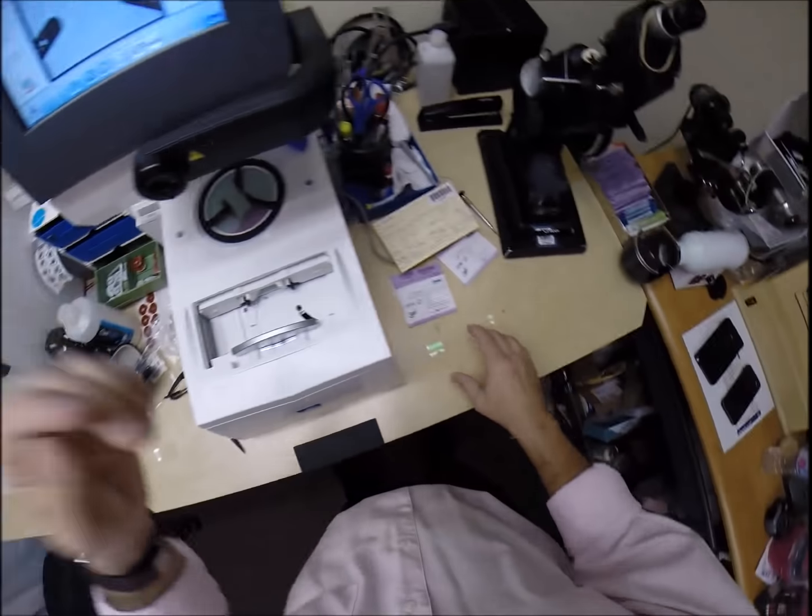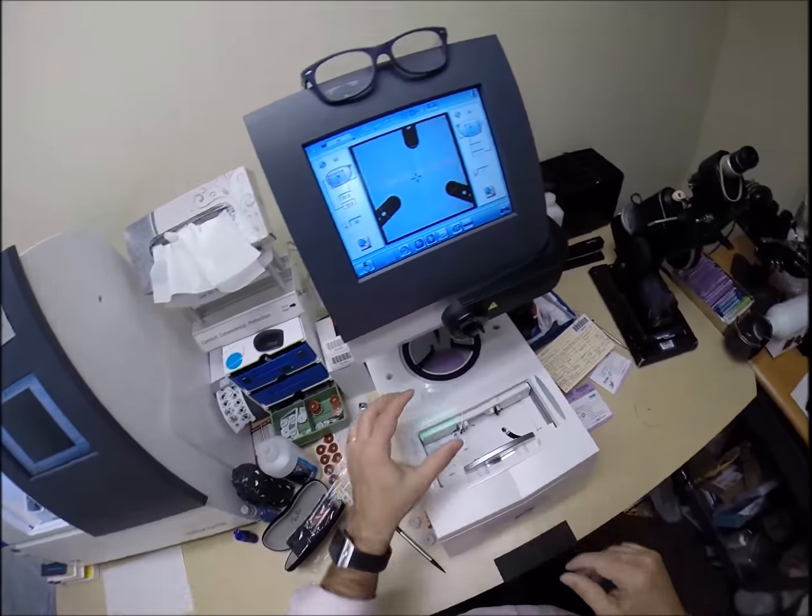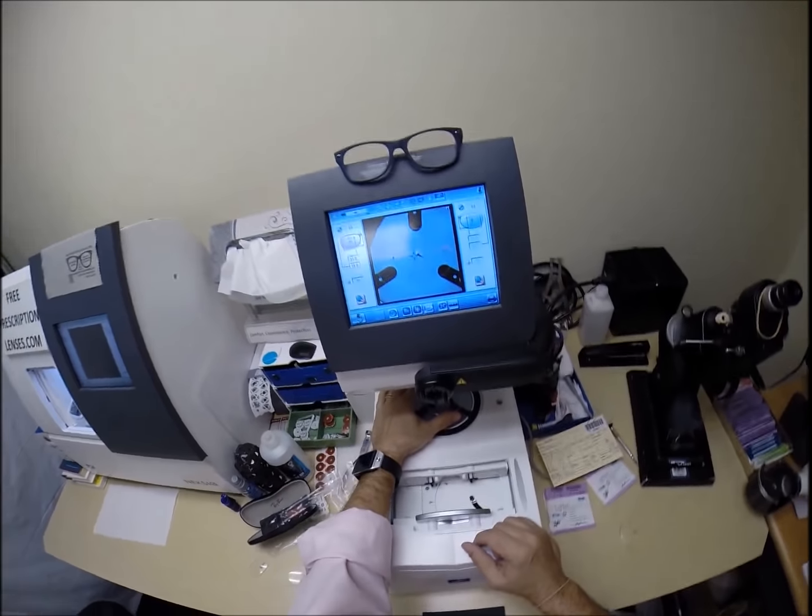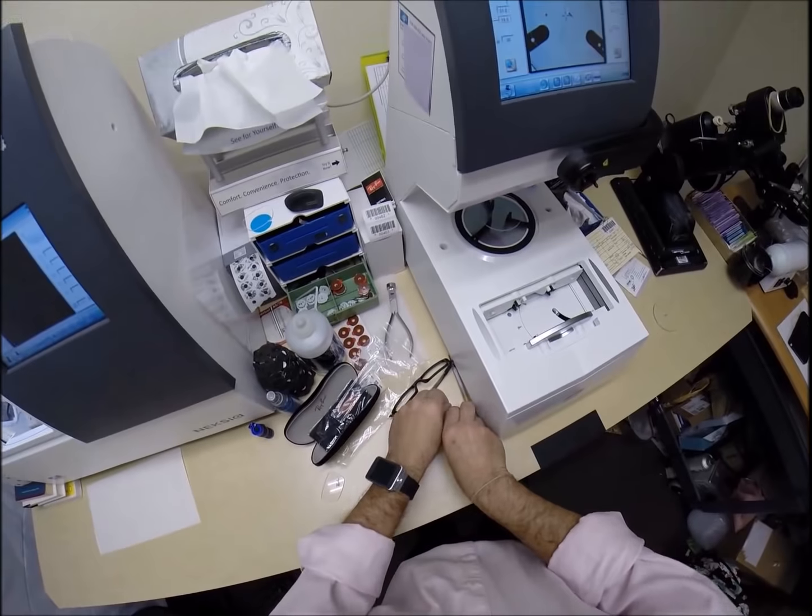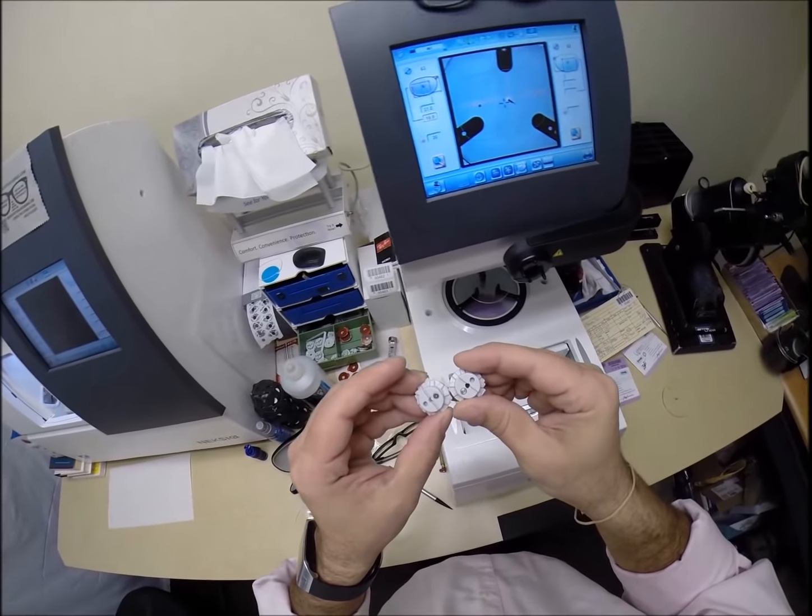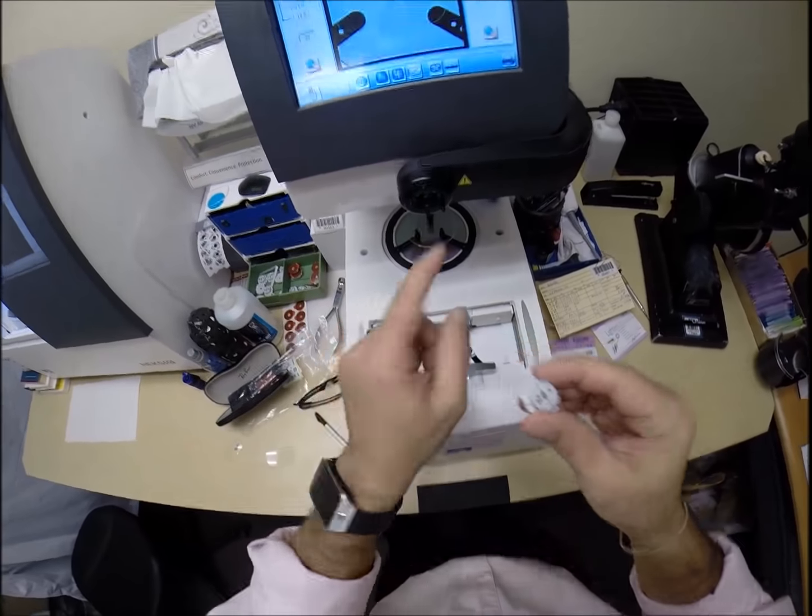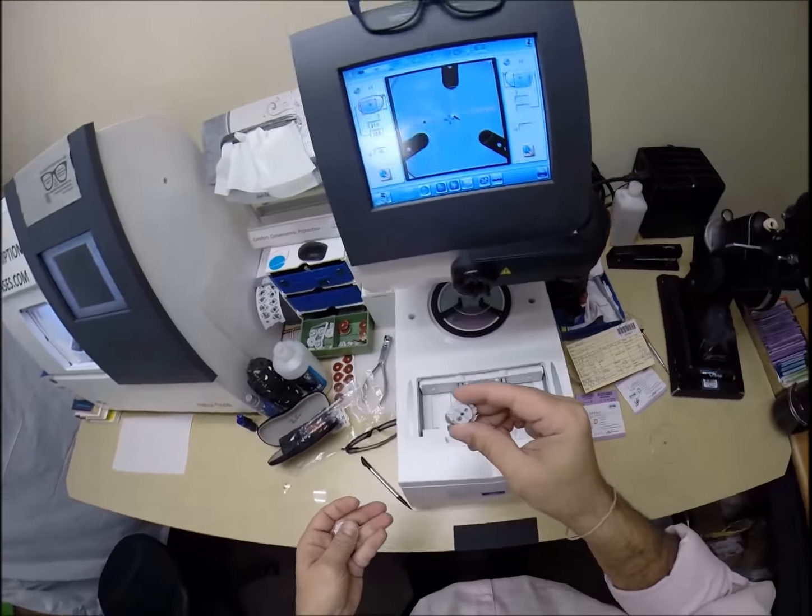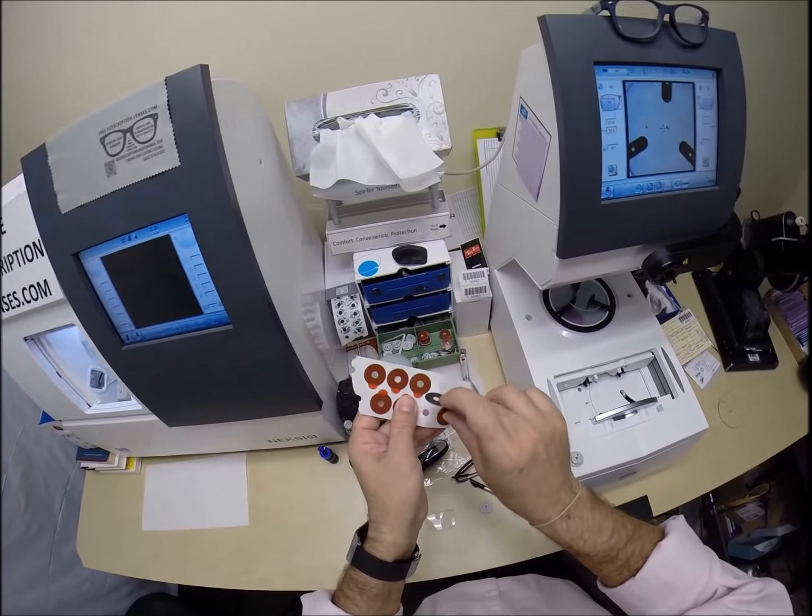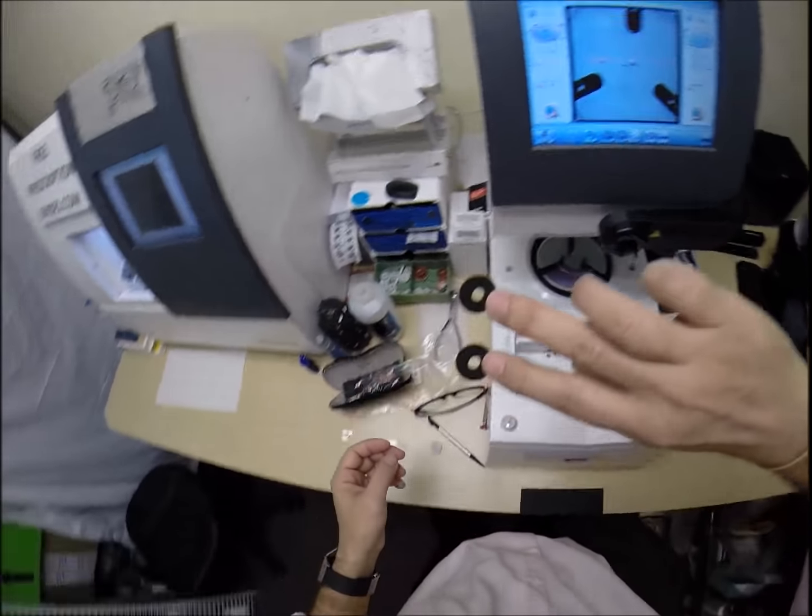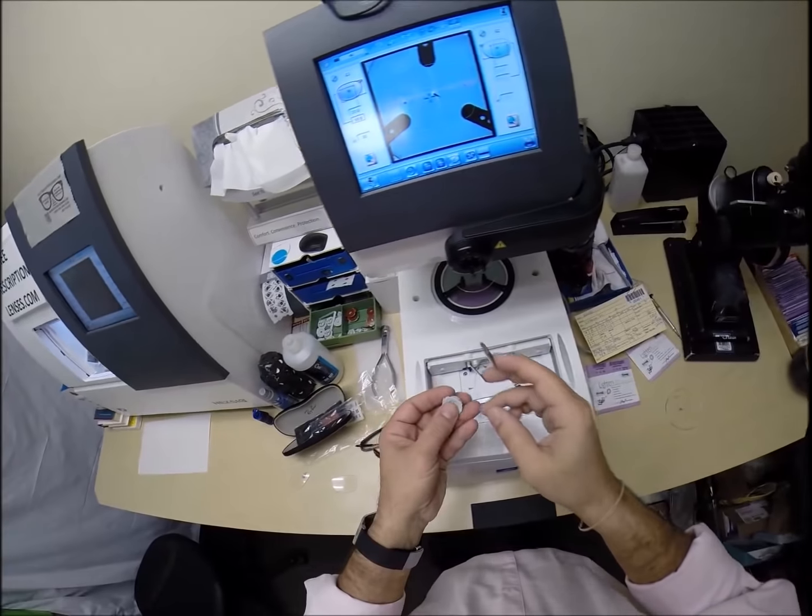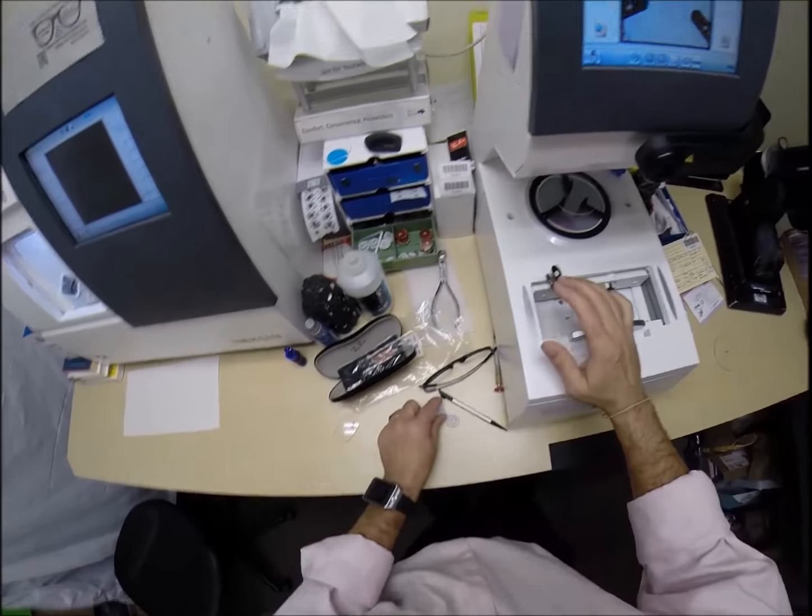And if anyone missed any of that, let me recap. I still think it is funny. So, the reason I put the three dots on there is it tells me that it is oriented in there just perfectly. So, I place that there. I need to get a block. Or as I like to call them, Jenny from the block. Because my wife is a J-Lo fan. But on the back is a little silver button that is a magnet that is going to attach itself to another magnet. It is going to do its job twice today. Let's go ahead and get these prepped. I am going to put two double-sided adhesive stickers.